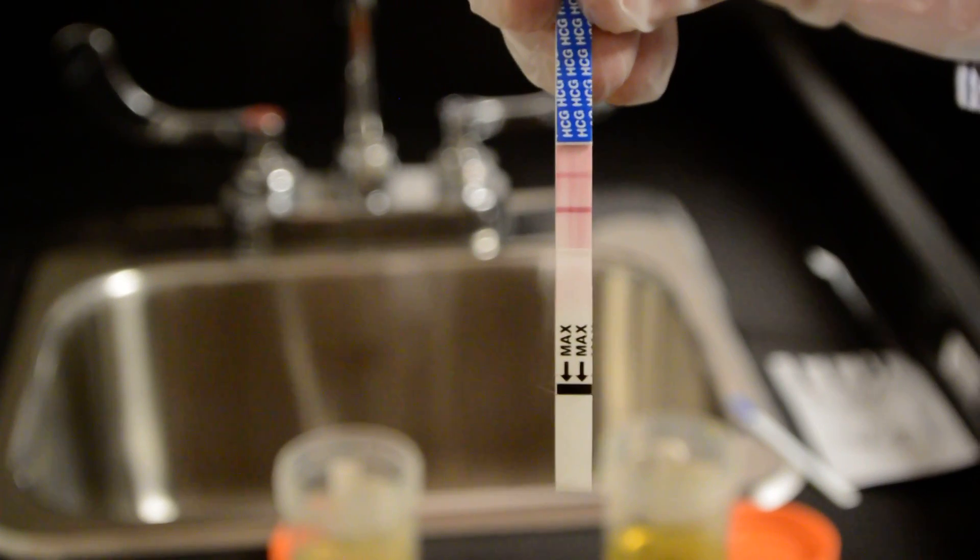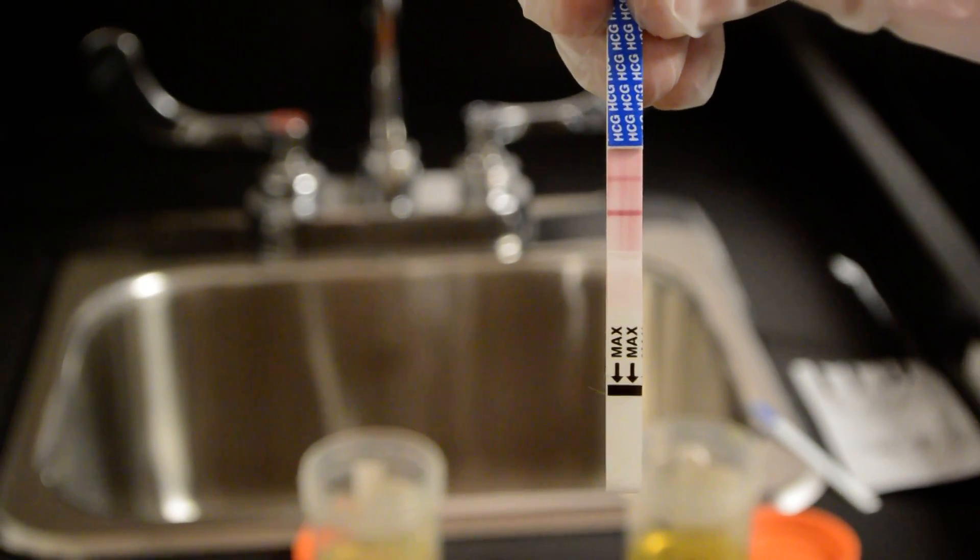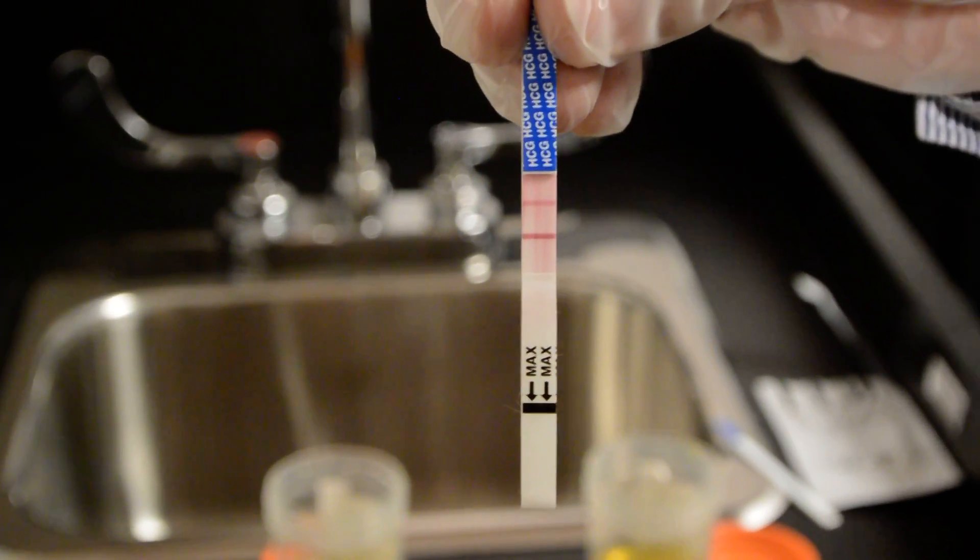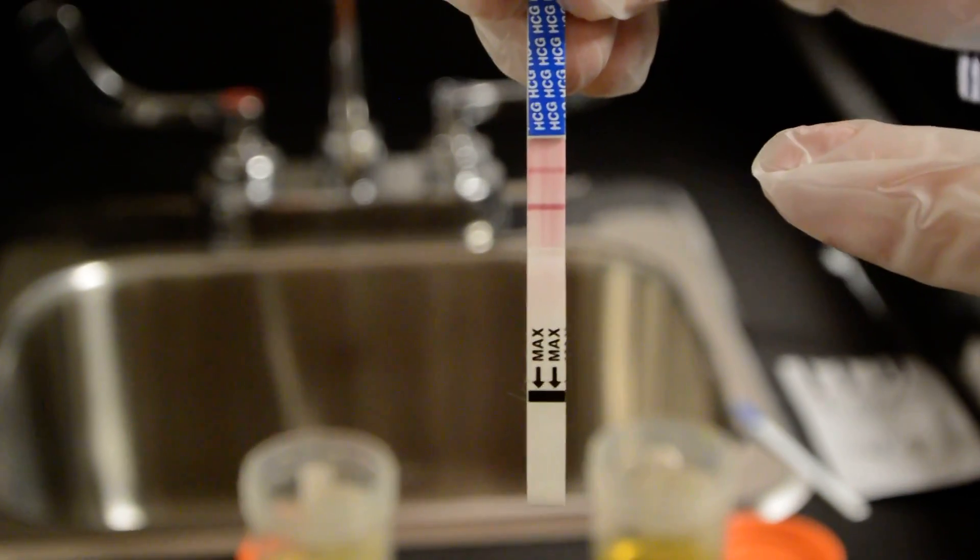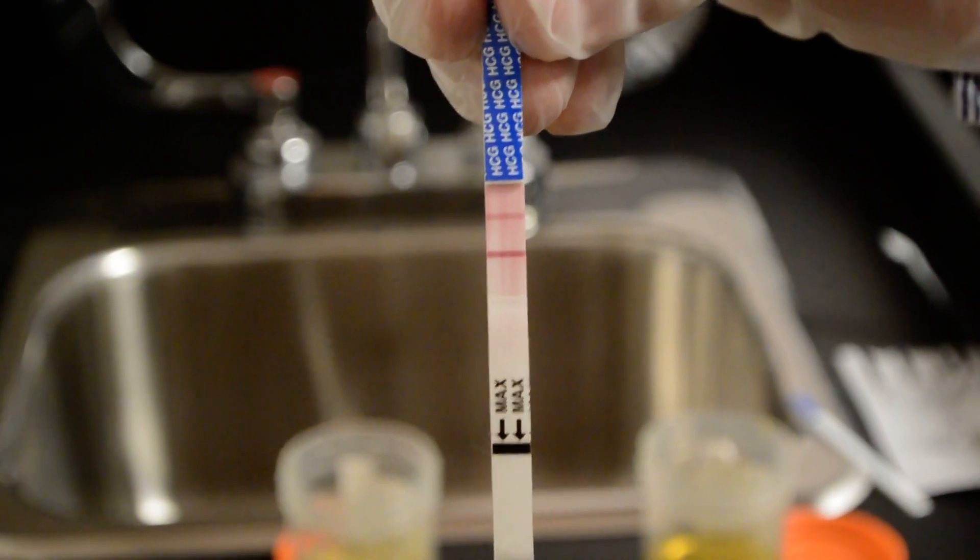So especially in cases where the pregnancy might be at a very early date you might have to wait a little longer. As you can see this sample is clearly positive as it has two lines.